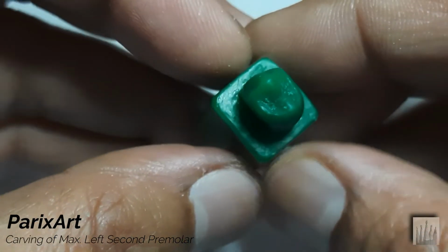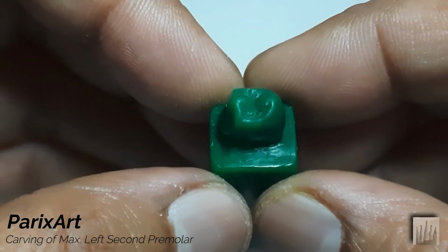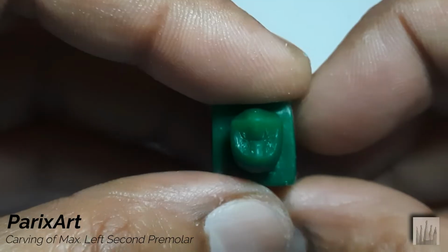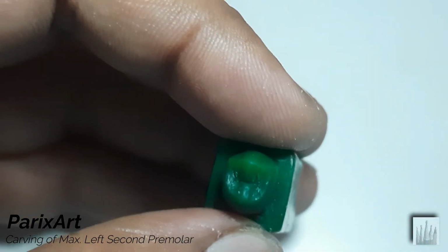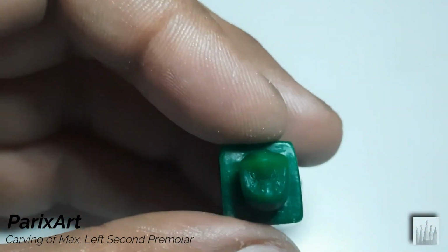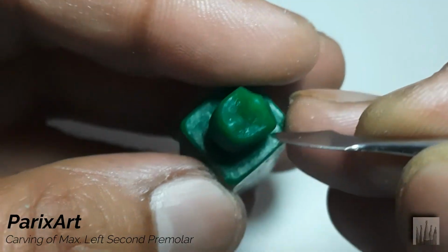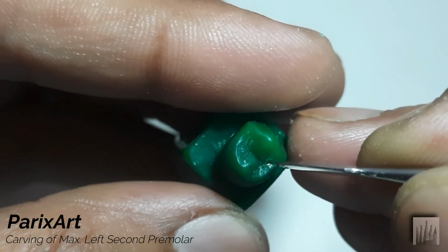Now see. Check again. A little more rounding of the fissure margins.